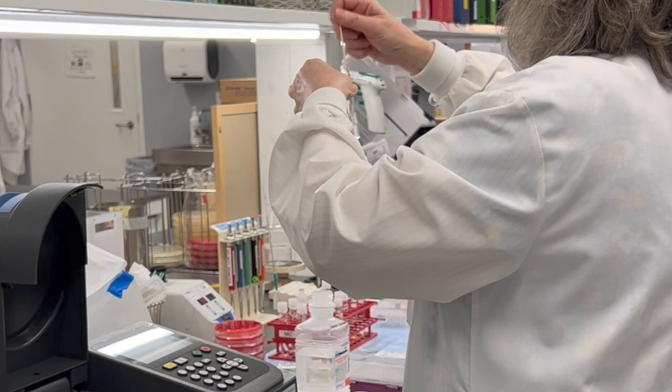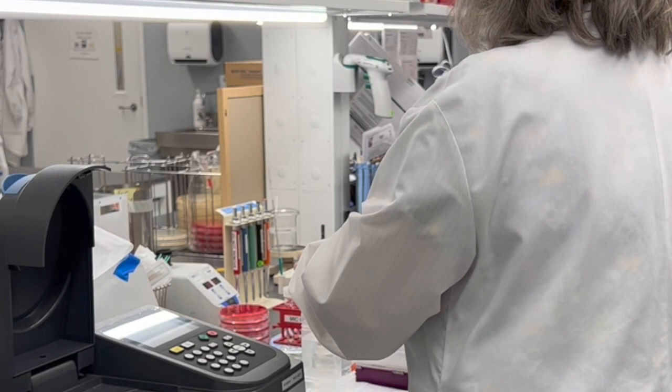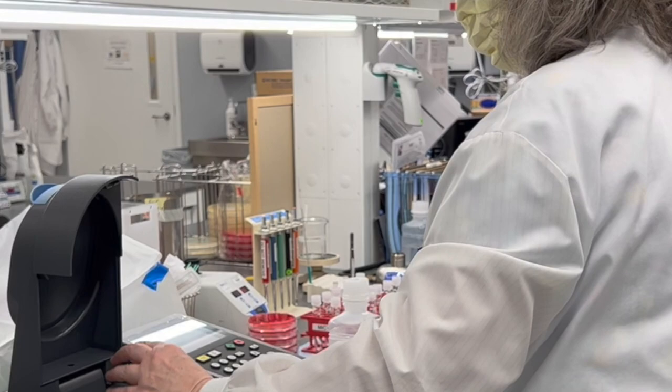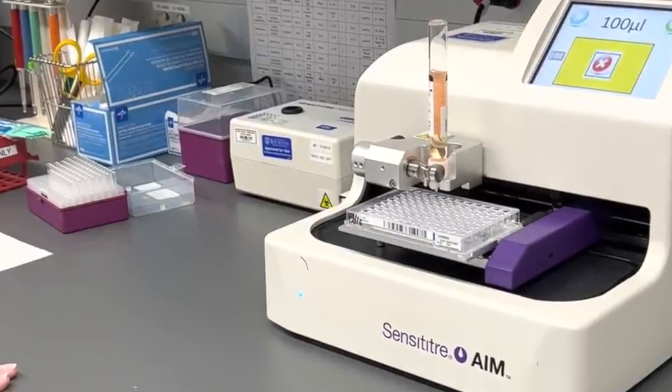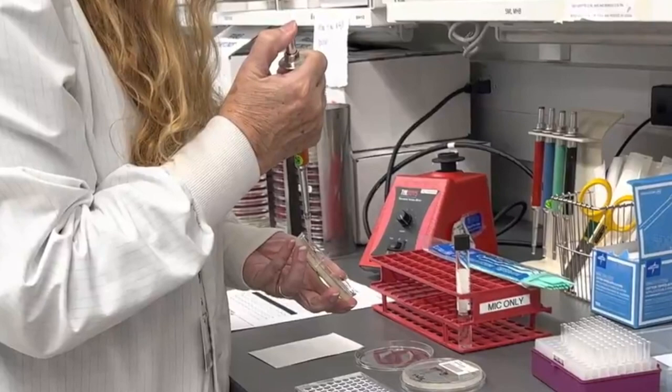Antimicrobial susceptibility testing is one of the ways the clinical microbiology lab plays a critical role in patient care. AST results are used to develop antibiograms, which summarize susceptibility patterns of common isolates within a particular hospital and contribute to antimicrobial stewardship initiatives.